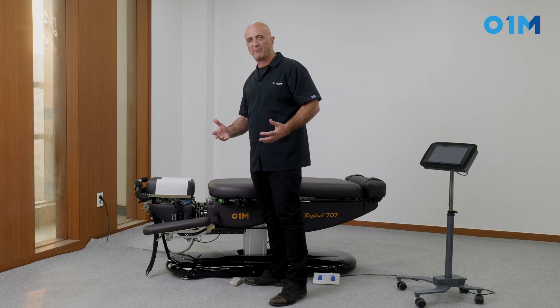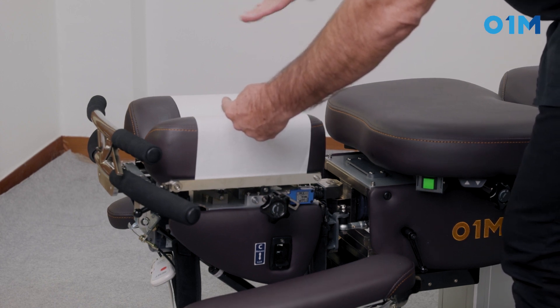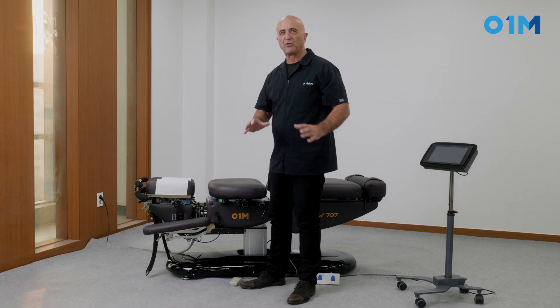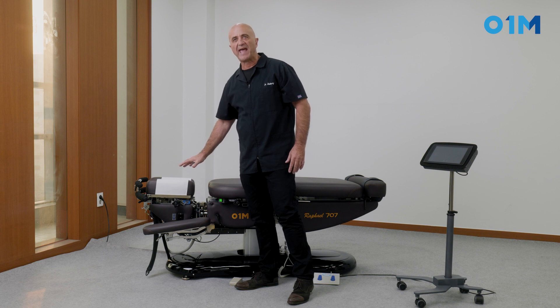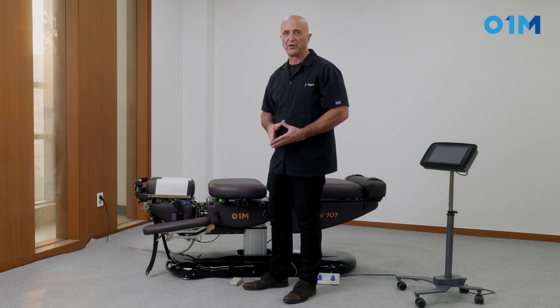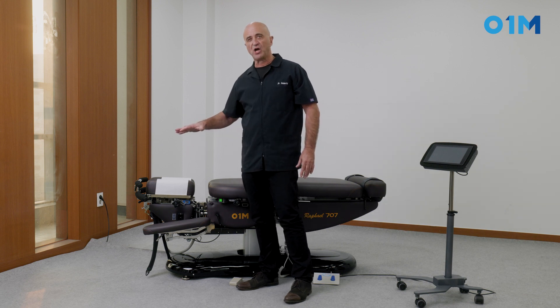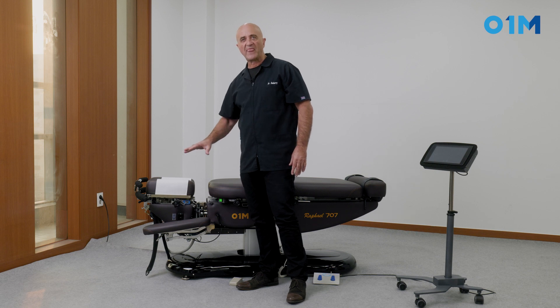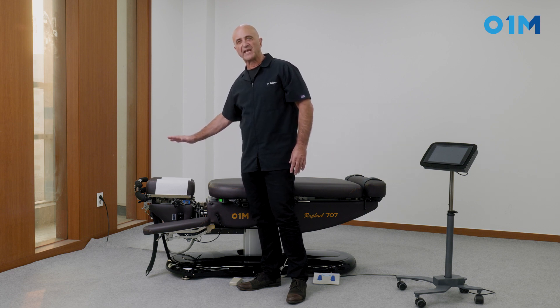There are different types of drop equipment on the market. You have what we call an axial drop, which is the most basic — it has an axle on the cephalid part and the drop turns around that axle for a few degrees. The problem with the axial drop is that depending on how the patient's head is placed on the headpiece, the resistance will change, making it much harder to set up. Then you have the plate drop, which does not work on an axle. It's a plate that raises up and goes down, and it's the most accurate drop because it doesn't change based on how the patient's head is positioned.